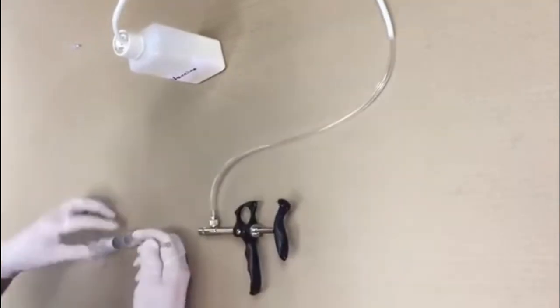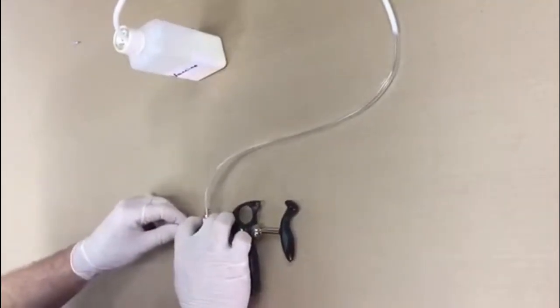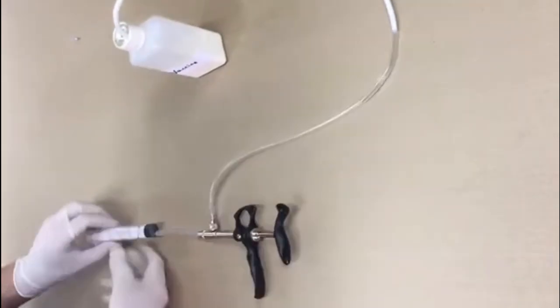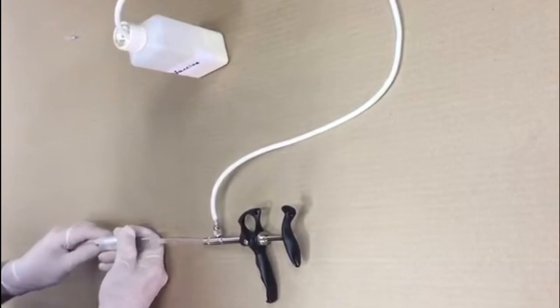Disconnect the disposable syringe and push out the air. Repeat the drawing out of air. Continue until the vaccine has filled the syringe and is coming out on the other side of the small tube.